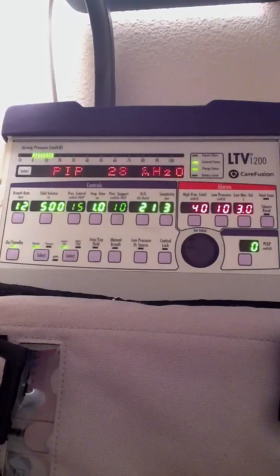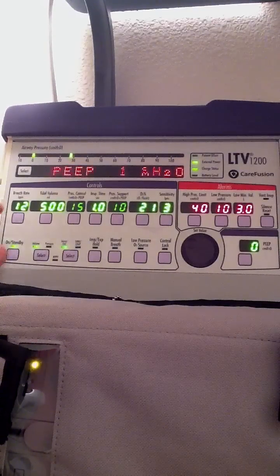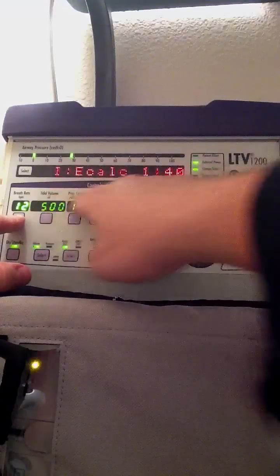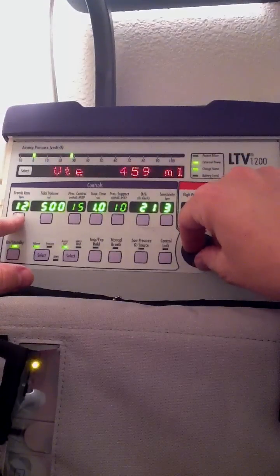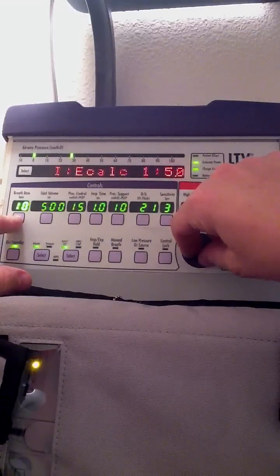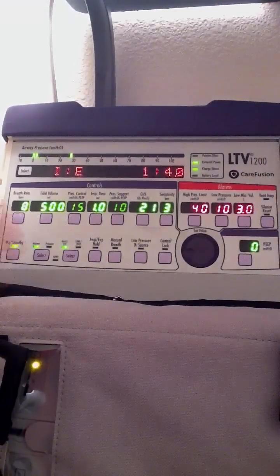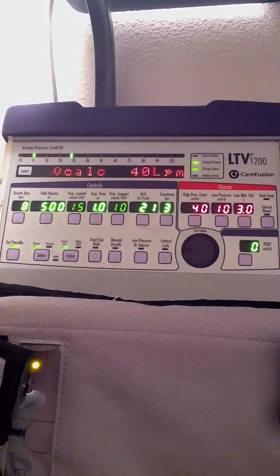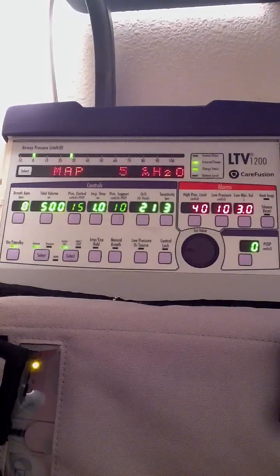To change a setting is actually quite easy. Let's say I want to decrease my respiratory rate to 8 — I'll go ahead and select that. Everything else will dim out and that setting will be lit brightly. Then with the selector knob I'll decrease the rate to 8 and hit select again, and it accepts that. If I fail to hit select, it will wait up to 5 seconds and then put in whatever you happen to have selected.